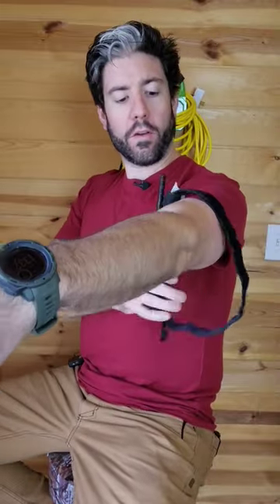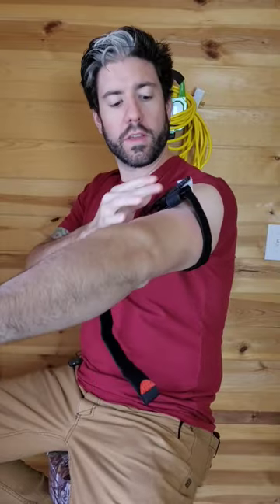This is a counterfeit Chinese tourniquet test — this is the Amazon special. We're going to try it out to make sure whether or not it fails, because a lot of people have these in their prepper inventory for first aid and don't realize how dangerous they can actually be.